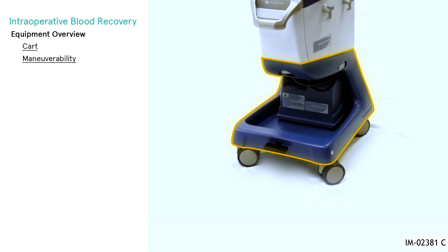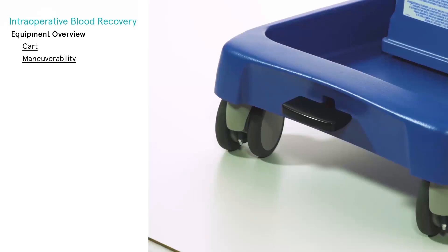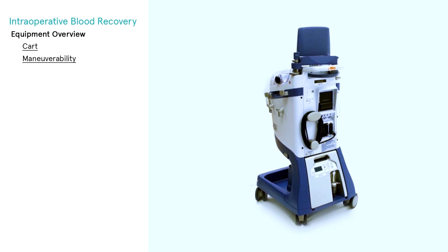The Extra cart is a dedicated separate element fixed to the body of the machine by means of two spring levers. It has four free-swiveling large diameter wheels to enhance maneuverability. A foot lever, located on the front of the machine, controls the locked or unlocked state of the front wheels. The rear wheels each have a similar lever to increase stability, if desired.